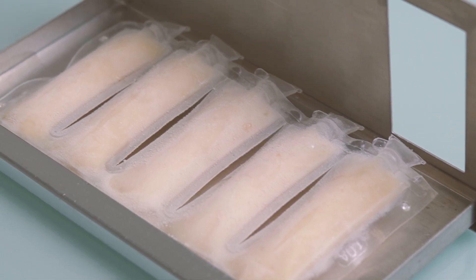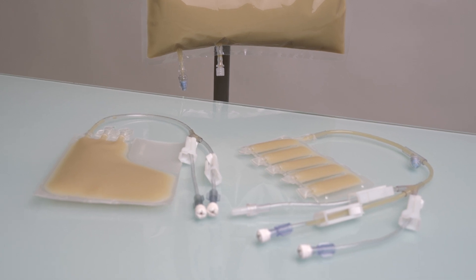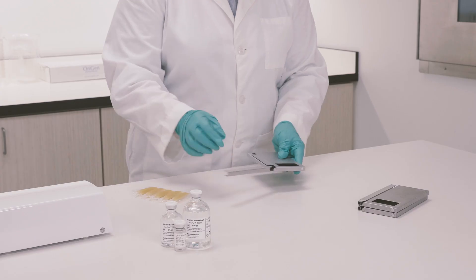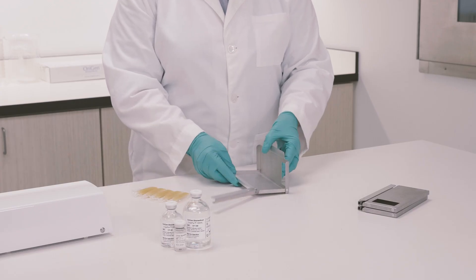Cell products frozen in the FlexBag are subject to the same stringent conditions as larger cell products in CryoStore bags, ensuring consistency and quality in your cryopreservation process.